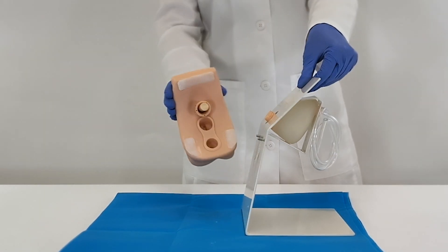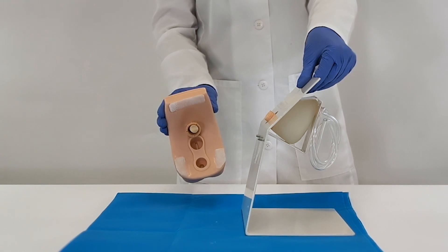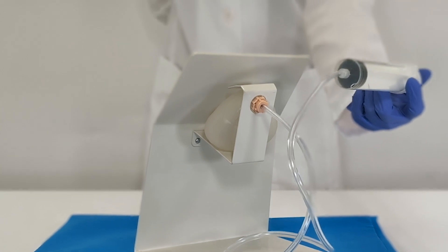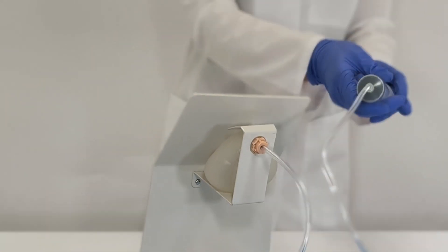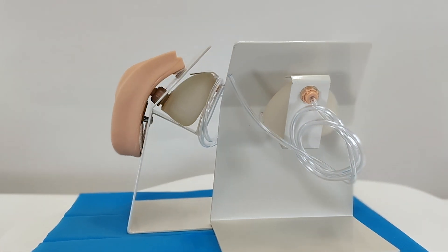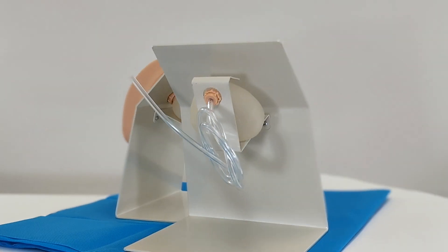With this model, trainees can practice catheter placement, withdrawal, and bladder irrigation, all while experiencing lifelike resistance and pressure akin to real patient scenarios. These simulators accurately replicate anatomical landmarks for a realistic catheterization experience.